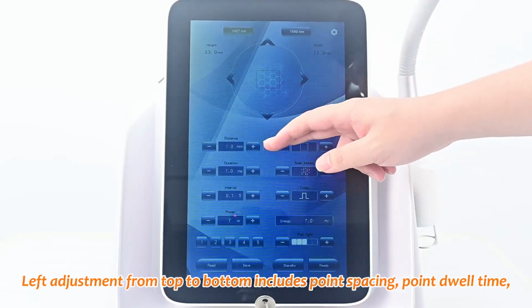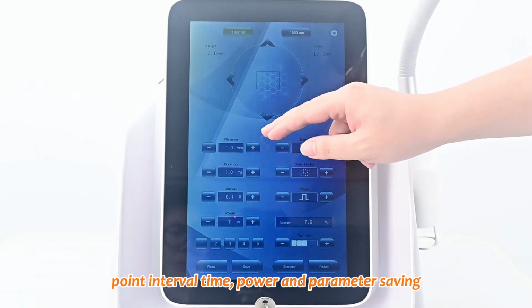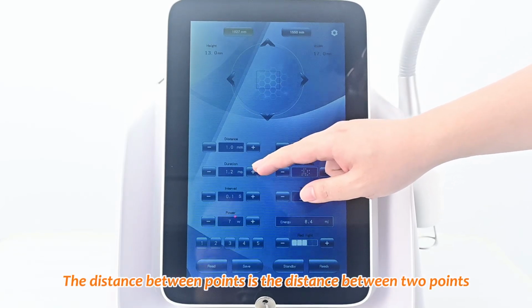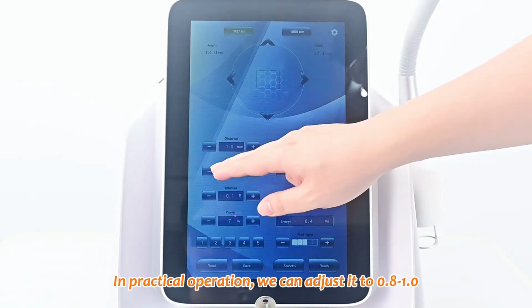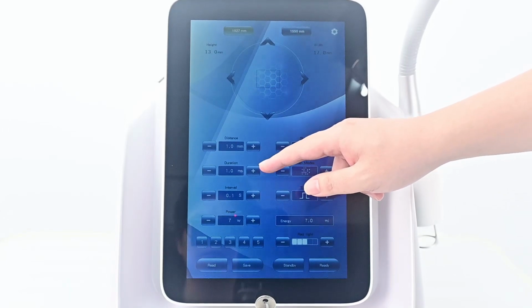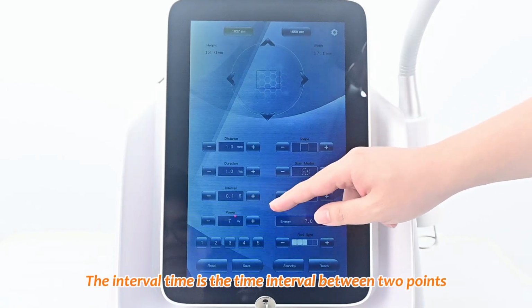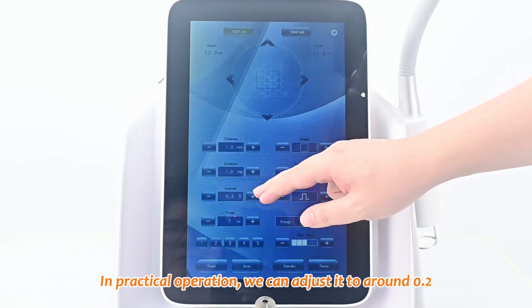Left adjustment from top to bottom includes point spacing, point dwell time, point interval time, power, and parameter saving. The distance between points is the distance between 2 points. The dwell time is the time a single point stays on the skin. In practical operation, we can adjust it to 0.8 to 1.0. The interval time is the time interval between 2 points. In practical operation, we can adjust it to around 0.2.